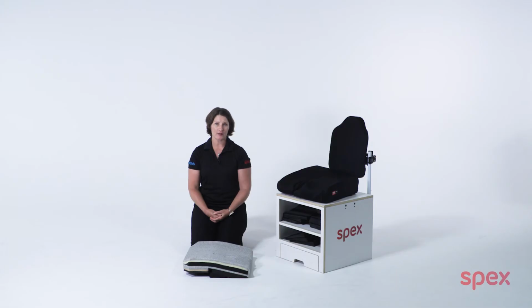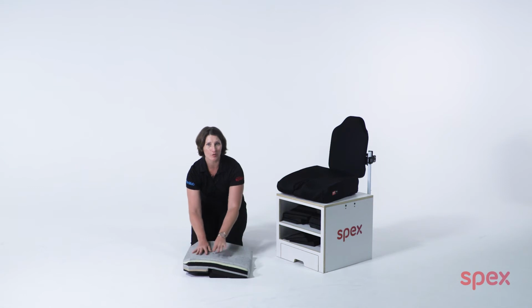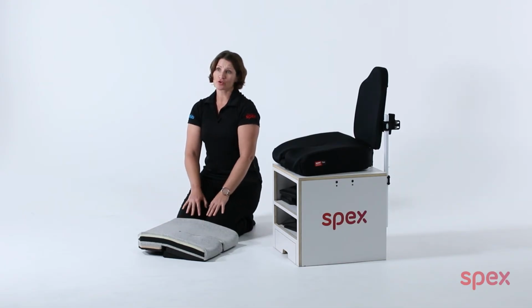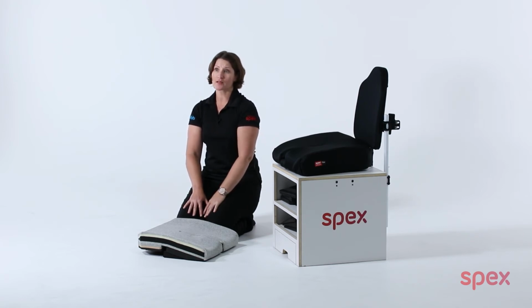To accommodate hip flexion limitations, we can use the flex cushion to raise the pelvis and lower the thighs to open up the hip angle, to accommodate the wheelchair user's limitations. This will allow for a more neutral spine, neck, and head alignment. This also avoids the need for a back support recline, which can contribute to neck flexion and kyphosis postural deformities that can develop long term.